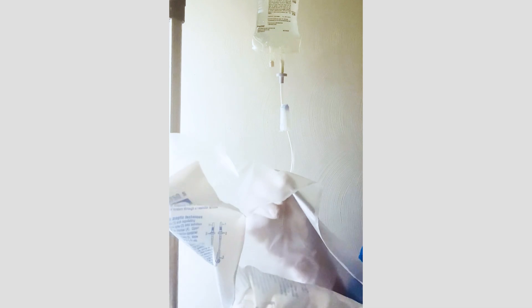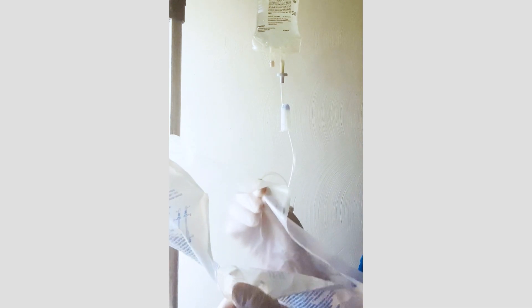In addition, if you open the packaging on the edge where the diagram is, it's actually a perforated package, so you'll be able to easily open it.